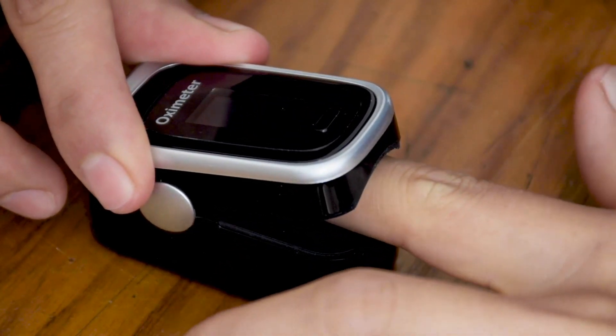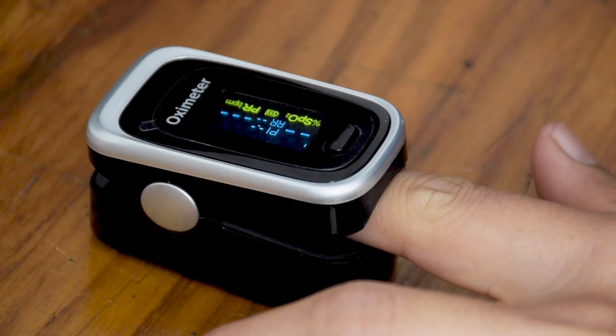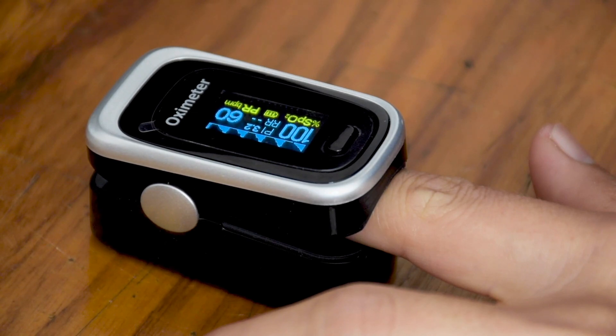At minimum, more than 89% of your blood should be carrying oxygen. This is the oxygen saturation level needed to keep your cells and your body healthy. While having an oxygen saturation below this temporarily is not believed to cause damage, repeat or consistent instances of lowered oxygen saturation levels may be damaging.